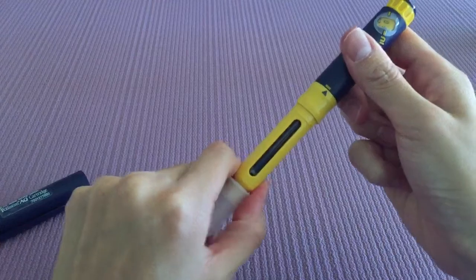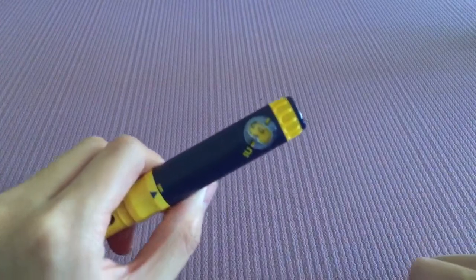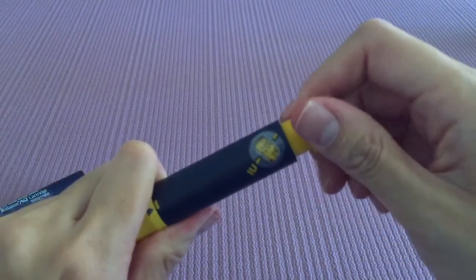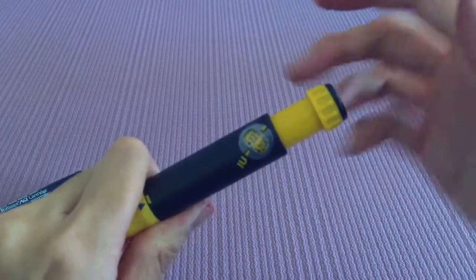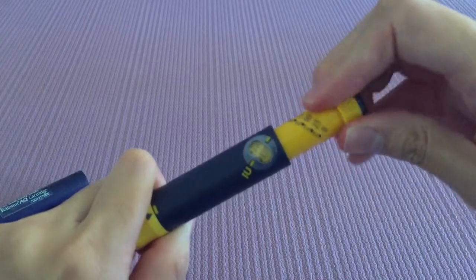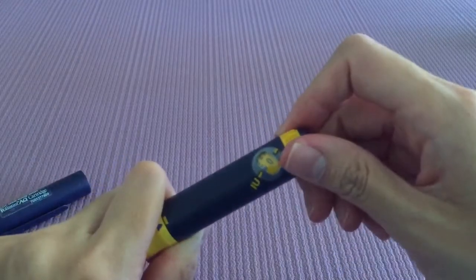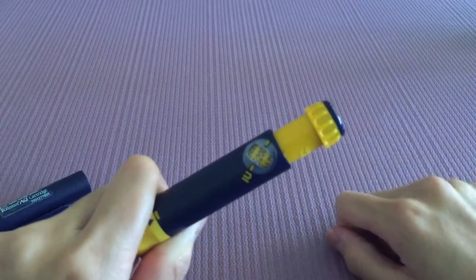Now we're ready to dial up our pen to our dosage. Suppose your dosage is 200 international units — dial this to 200. If you've gone over, don't worry. Just dial all the way up, push it down, and it resets. Let's try again — dial to 200. Much better.